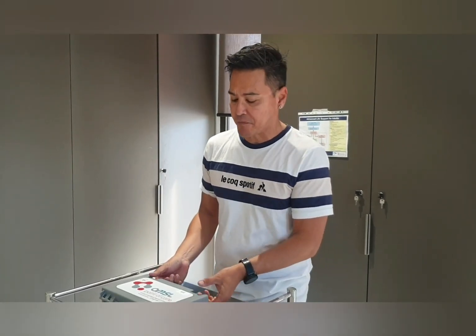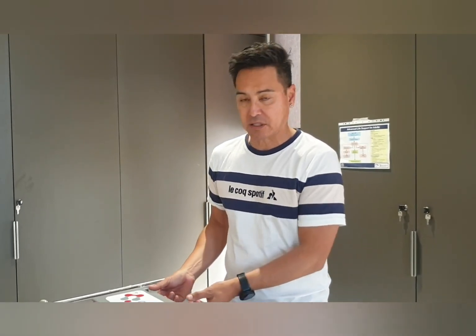So you've got to take a blood sugar level — it's probably been a while since you've taken one, and that's why you've clicked on to watch this video. I'll write in the video description: a normal blood glucose level on somebody that doesn't have diabetes should be anywhere between four to eight. When you get around eight, that's when people start to question why the blood glucose level is so high.